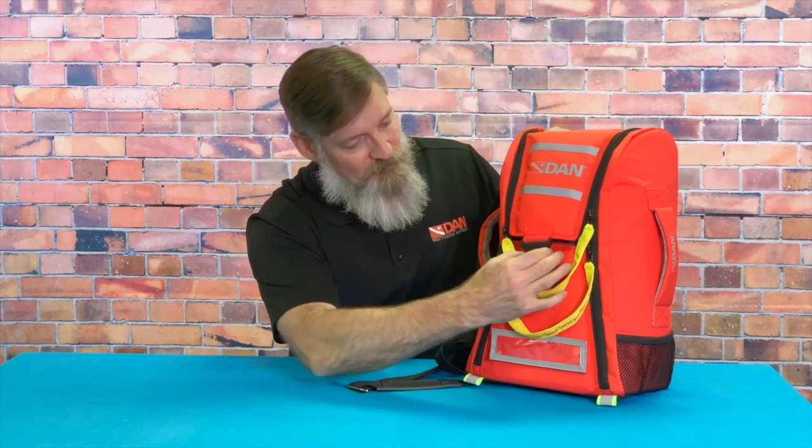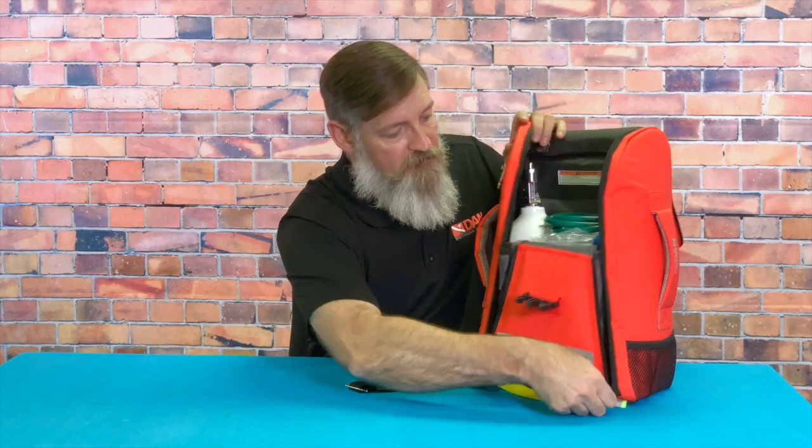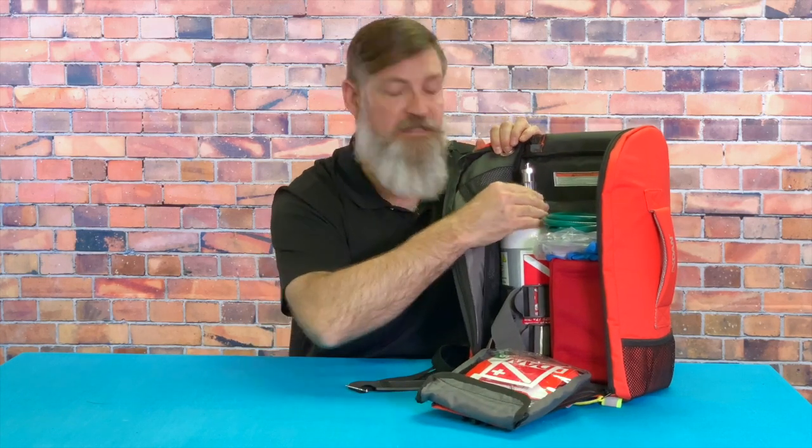In the front you can also see nice reflective tape and a clip here to keep everything in place. The unit's nice and compact — it's one of the smallest cylinders, which is why it's not ideal for heavy-duty emergency gear far out to sea, but around a pool or waterside this is great. It's ideal for dive professionals, dive shops, resorts, and definitely for the private diver.